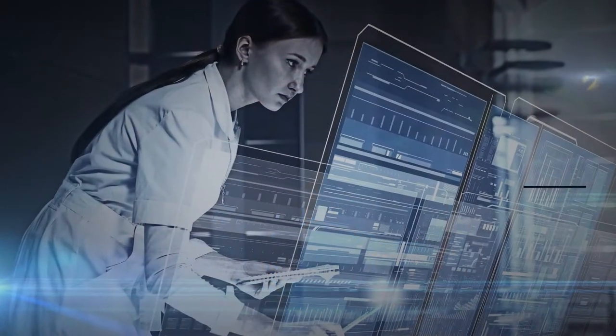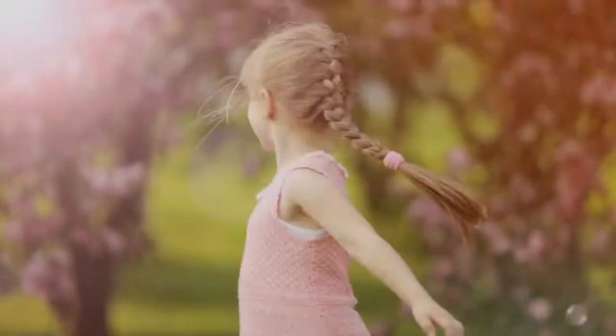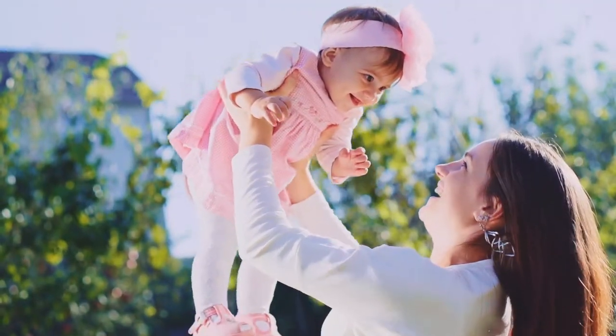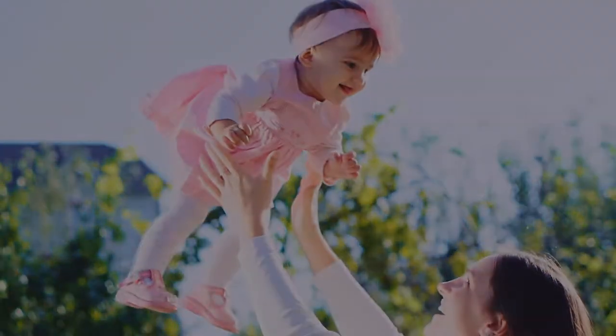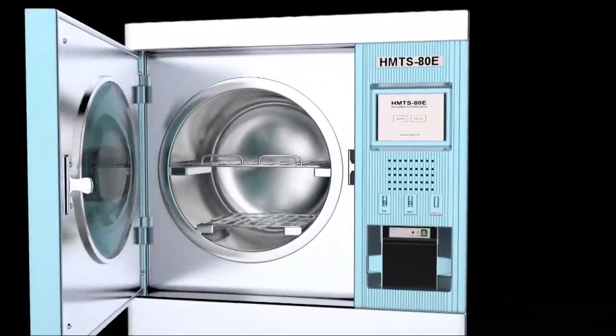Advancing to a better tomorrow through innovation, safeguarding the future of mankind for health and happiness. The history of Human Meditech is the global history of plasma sterilizers.